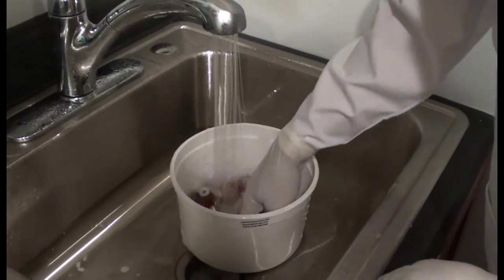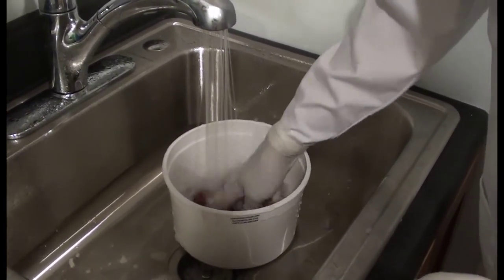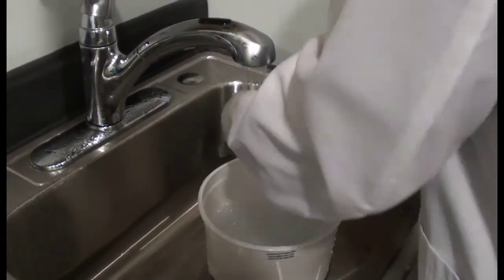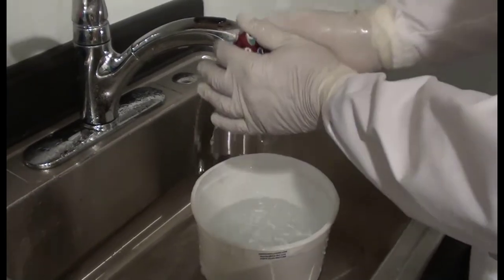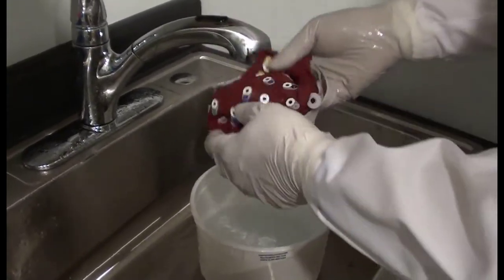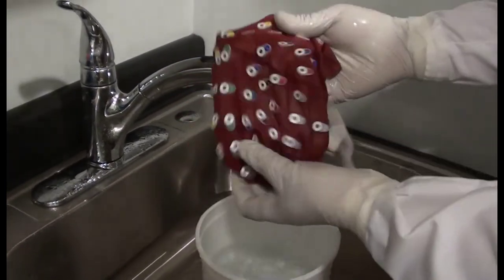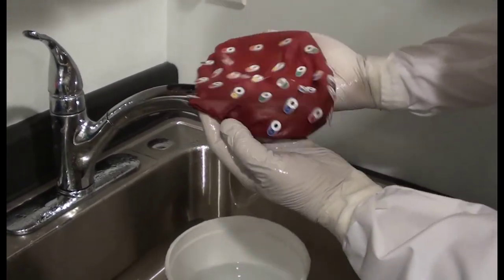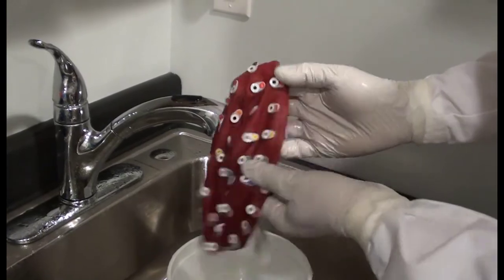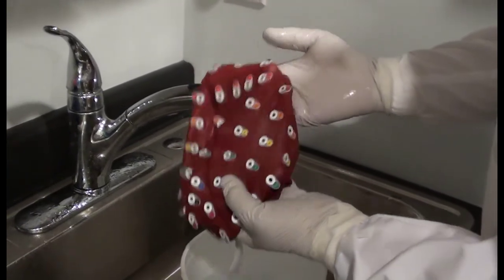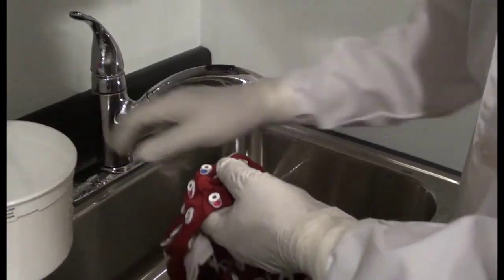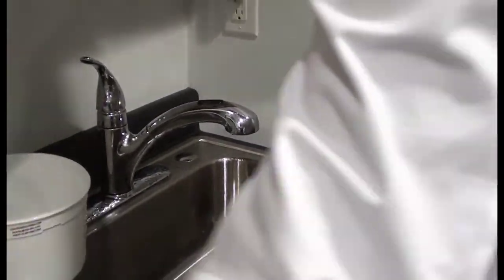Finally, run one more bucket of clean water and thoroughly rinse the soap out of the cap. Then towel dry the cap, removing the majority of the water from it, to prepare for disinfection. Consider that water in the cap may dilute whatever disinfectant solution you choose to use, and that can make it less effective. Our high-speed cap dryer can fully dry a cap in as little as three minutes, so consider that optional accessory if you want to ensure the effectiveness of your disinfectant solution.